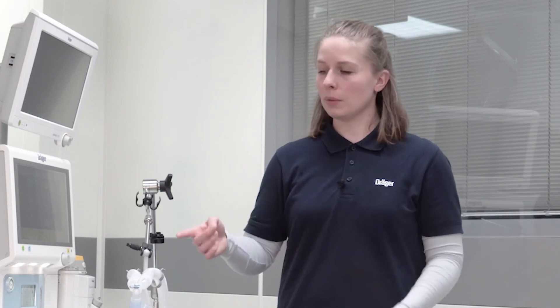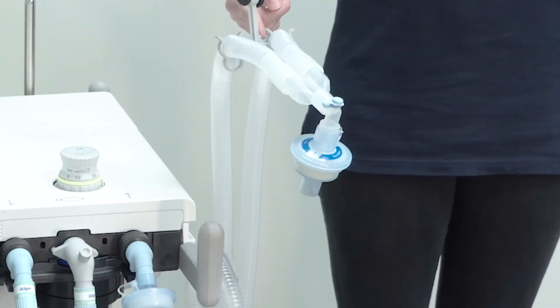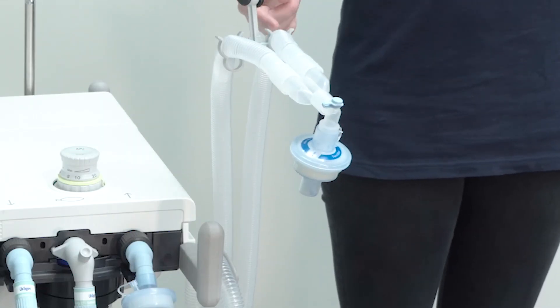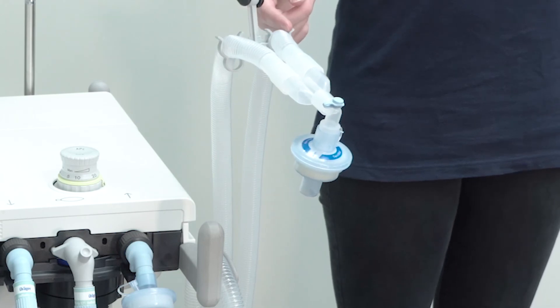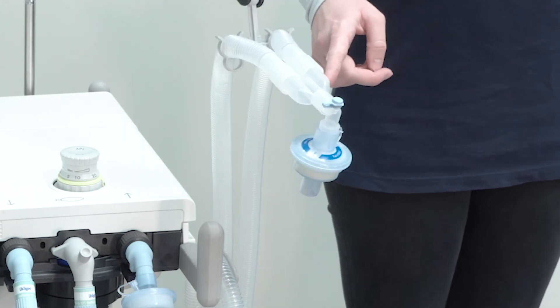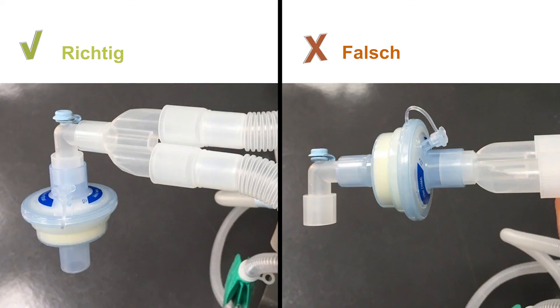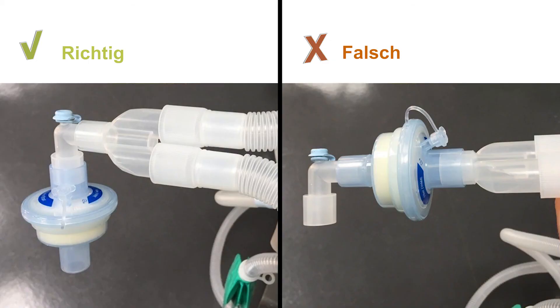Regarding the correct positioning of the filter: be aware that some hose systems consist of several parts. Therefore, it might be technically possible to connect the filter at the wrong position. Always make sure that the filter is positioned correctly.